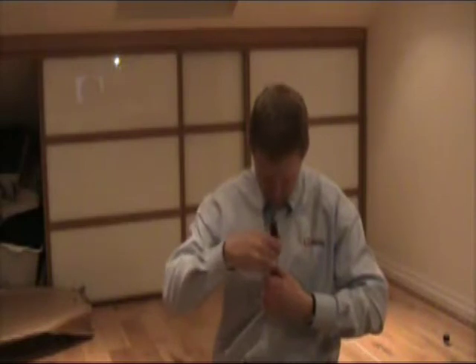The large one would work the same way. I'm not sure that it would go through this hole — the hole's not big enough for this shirt. But if you had bigger buttons, you'd have bigger holes, so this would be able to fit through to pull the button through.